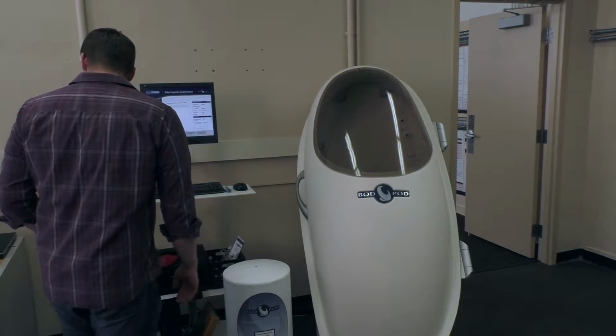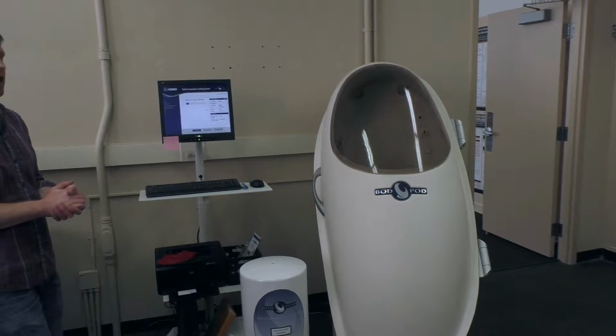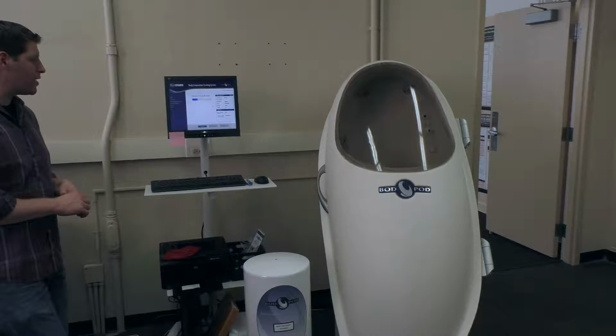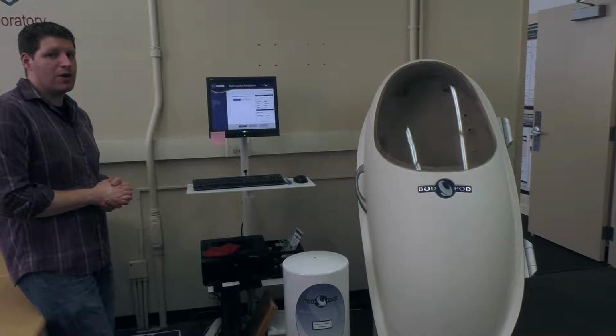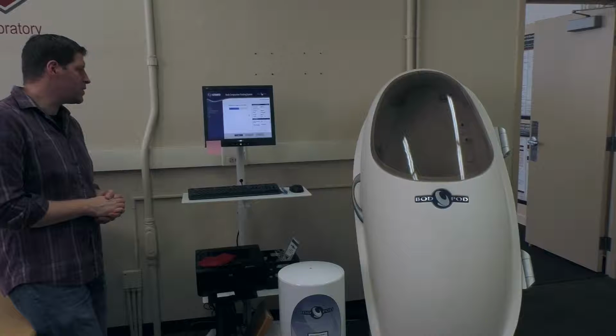Then it's going to go through a pre-calibration process. This isn't the big calibration I was just talking about. This is just a mini one we do before every single test. First it wants to do a calibration assessment before we put in our known volume, and then after that we can put our participant in. Fairly simple, fairly basic. So we'll wait for this calibration process to get done.